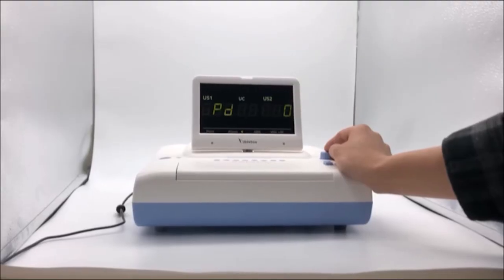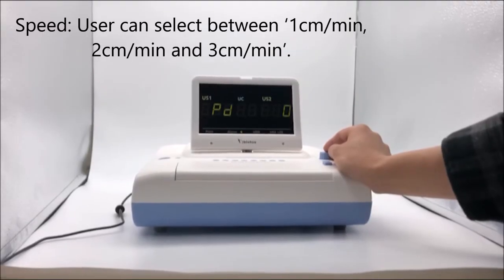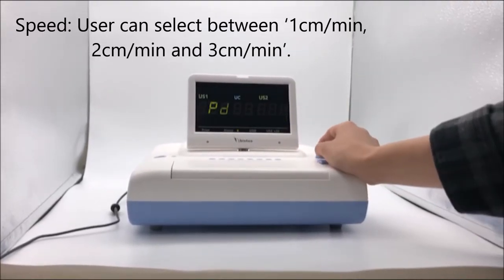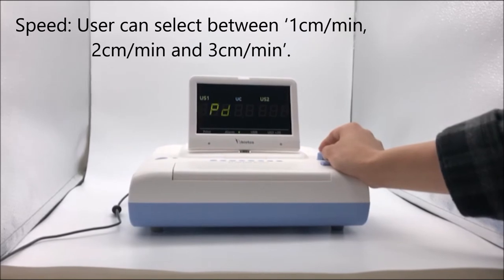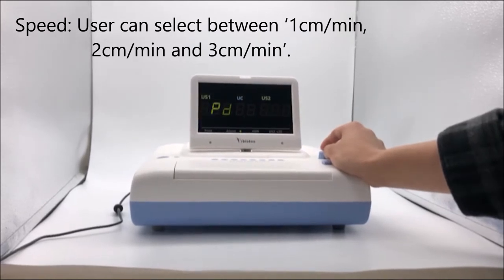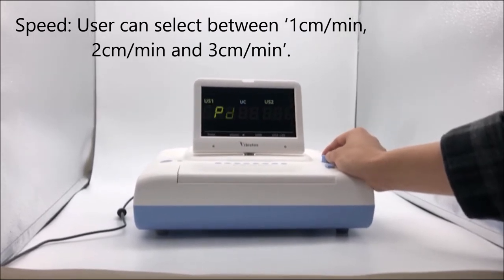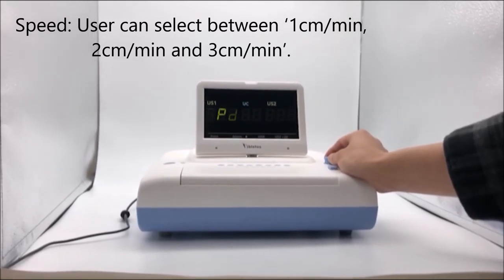Speed setting: the user can select between 1 cm, 2 cm, or 3 cm per minute.